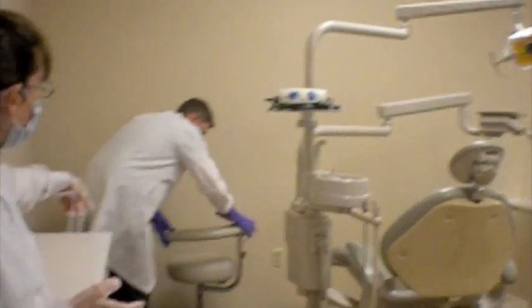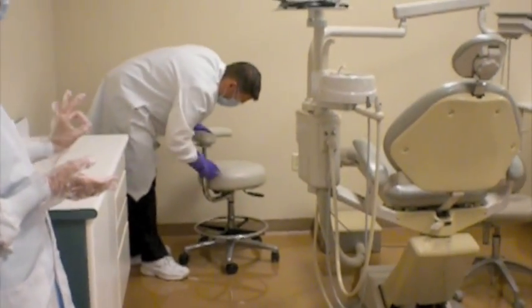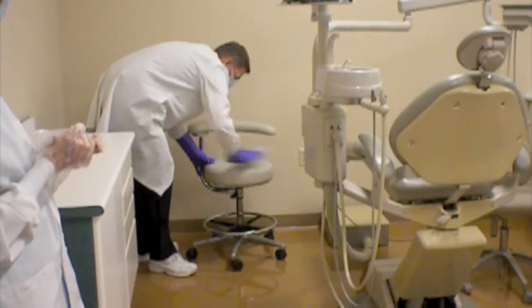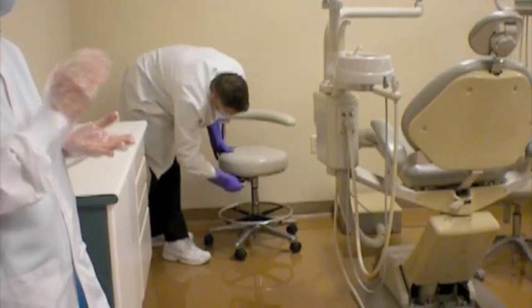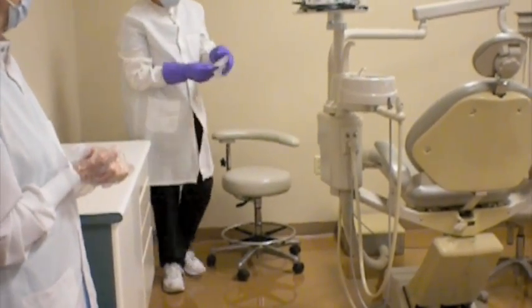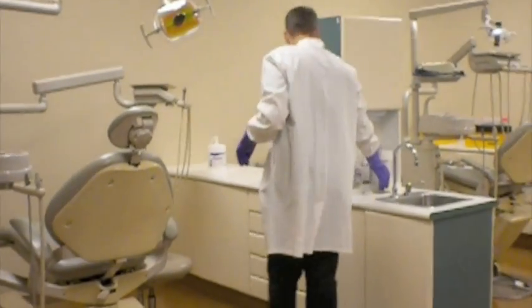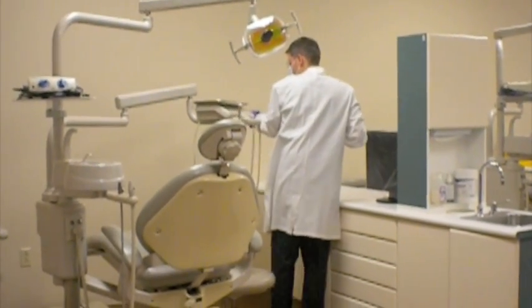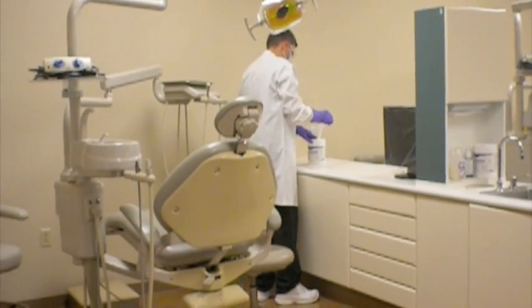This is an assistant chair, so again, wiping the top of the back of it, the poles and adjustment levers there, the seat of it, the top, the sides, the bottom, and then the adjustment lever on that, the paddle on that top and bottom as well, as a top surface. So when he's done with that, again, always checking your wipe to see if you need a new wipe, if it's soiled or if it's beginning to wear. And he's now going to go to his next highest portion of the unit.